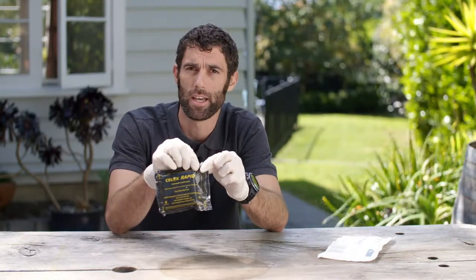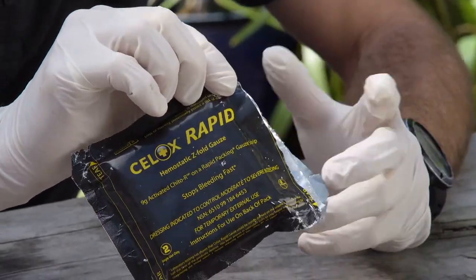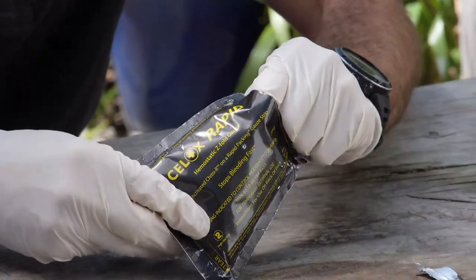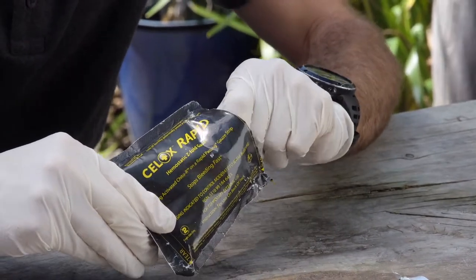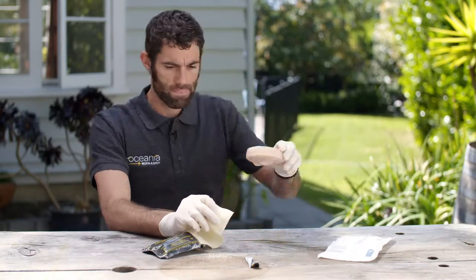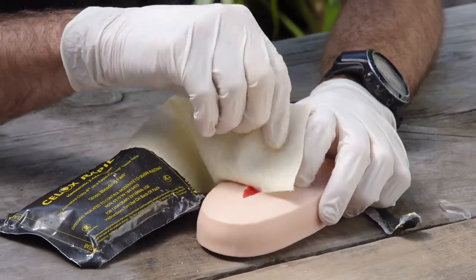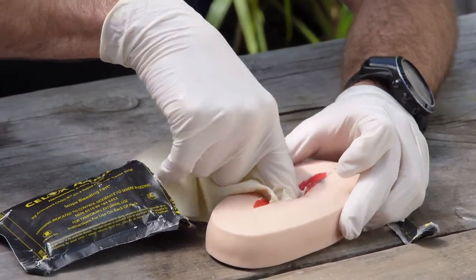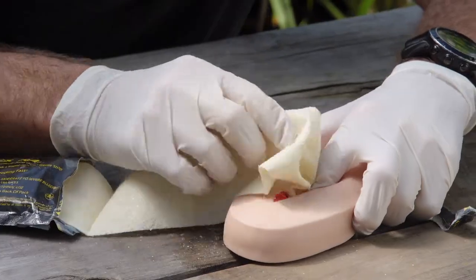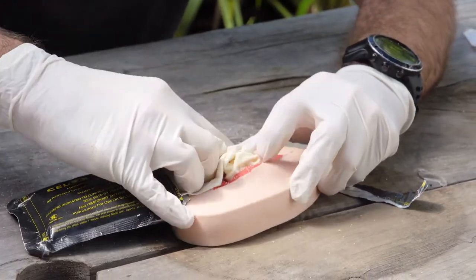The way it works — there are little tear tabs that are very important so you can open it quickly, because if your hands are already covered in blood, opening it can get pretty tricky. Inside is a Z-fold gauze; if you grab one end it should come out like so. This is what you put into the wound. You don't just put it on the surface — you need to get right into the wound where the bleed is actually coming from on the artery. That means getting your fingers in, pushing onto it, and holding pressure on the artery inside the wound. Keep pushing it in until the wound is full and overflowing or you run out.